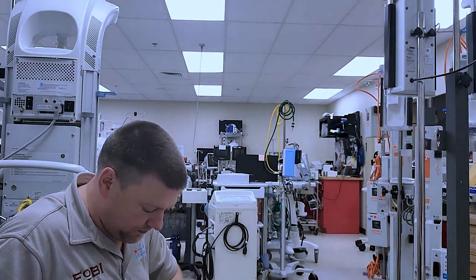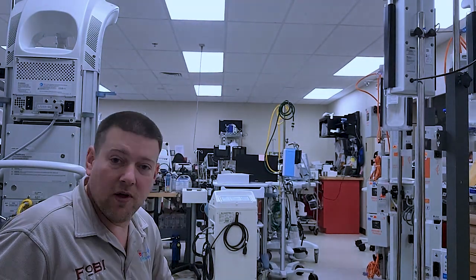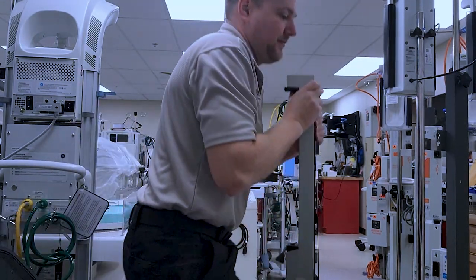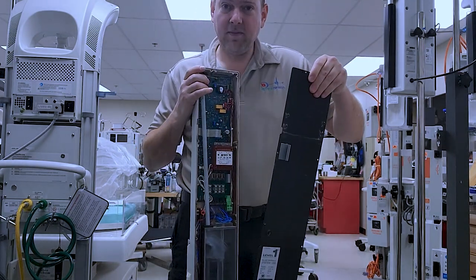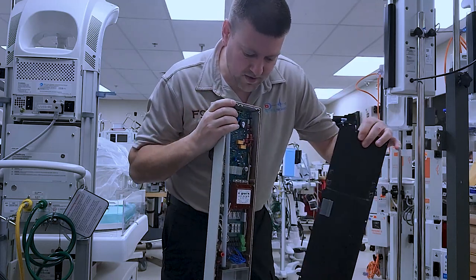Once we get the last Phillips out, now the back panel is full on. There's only a ground strap down at the bottom that's holding it on.